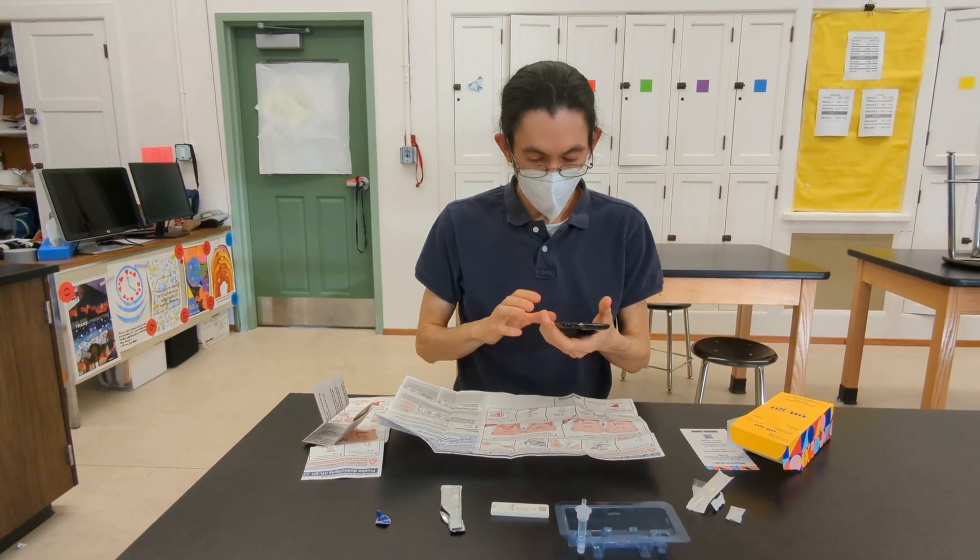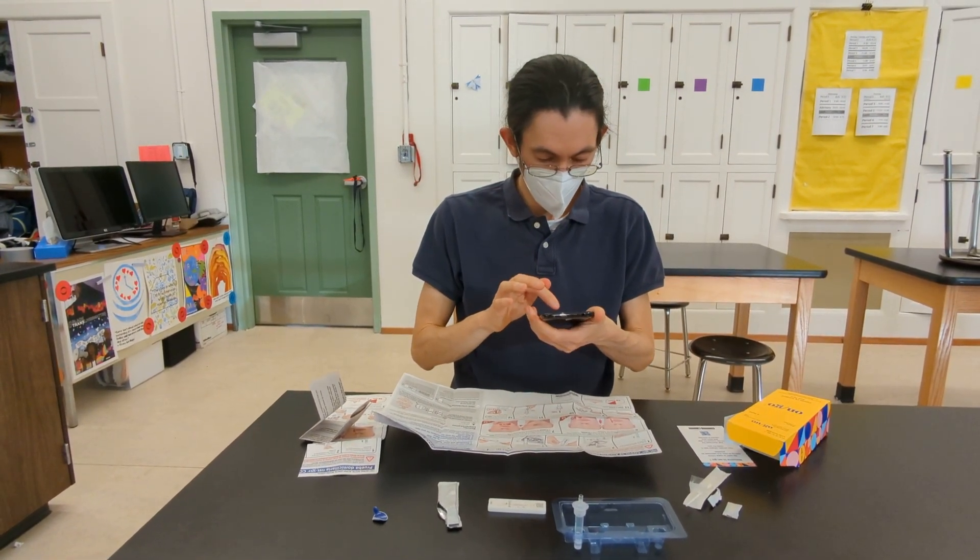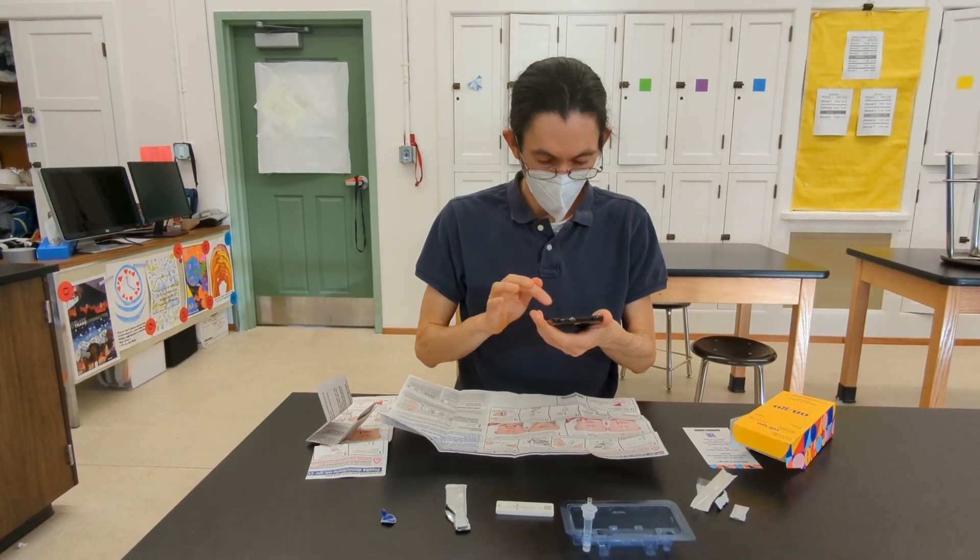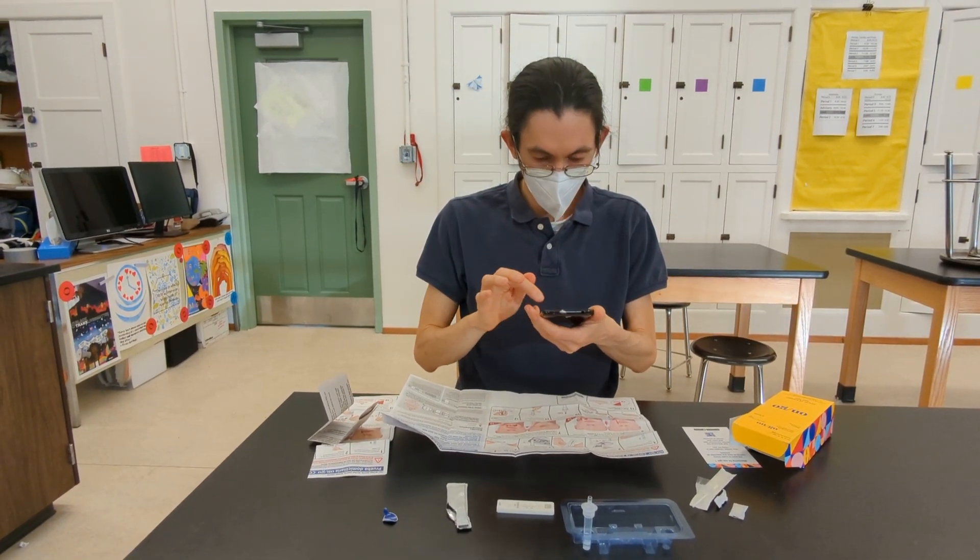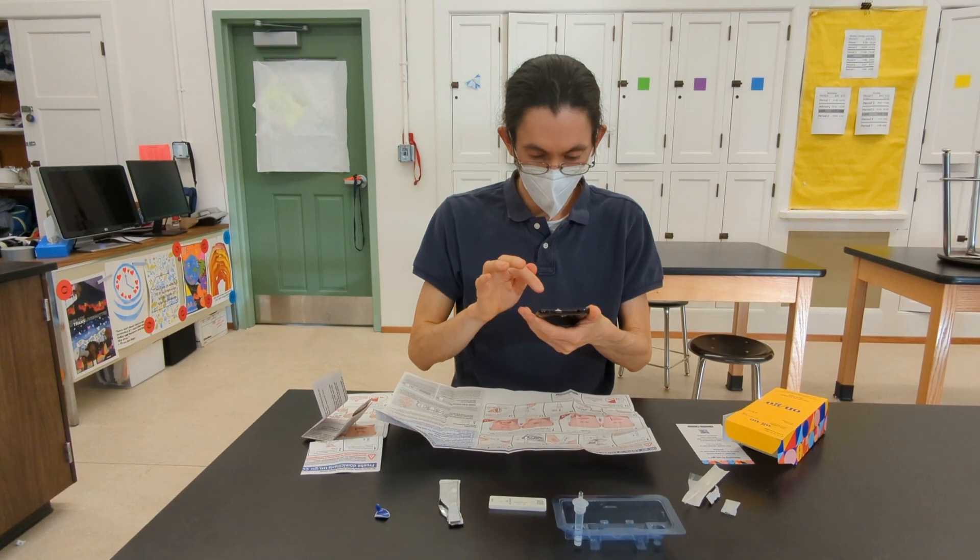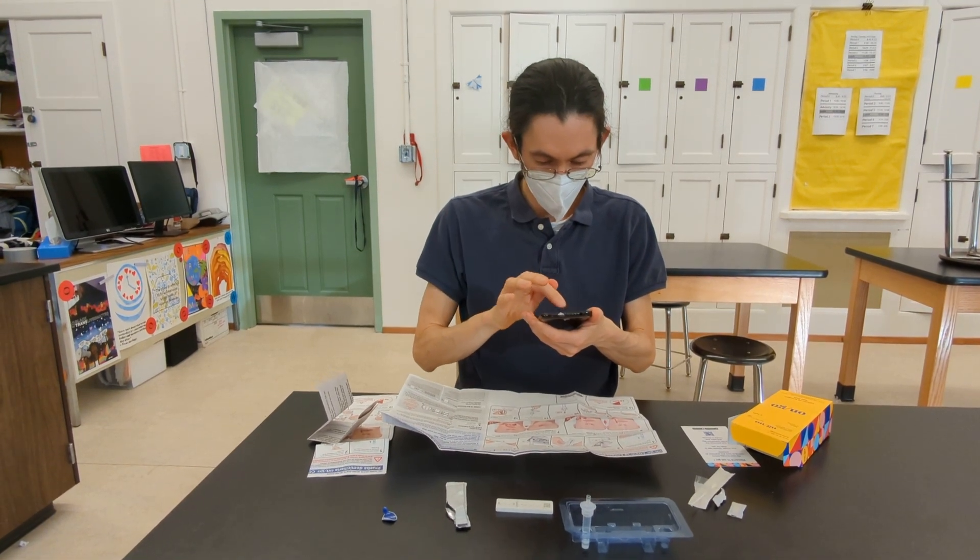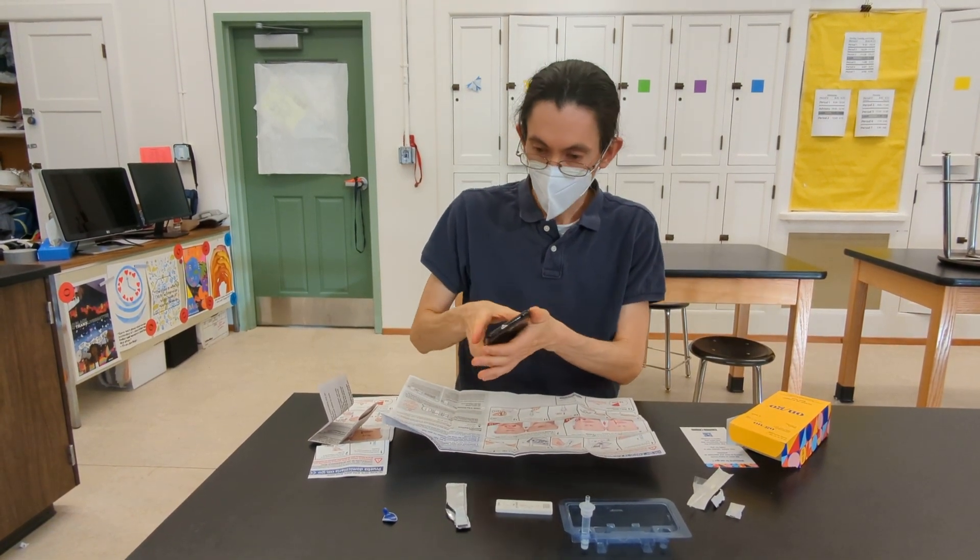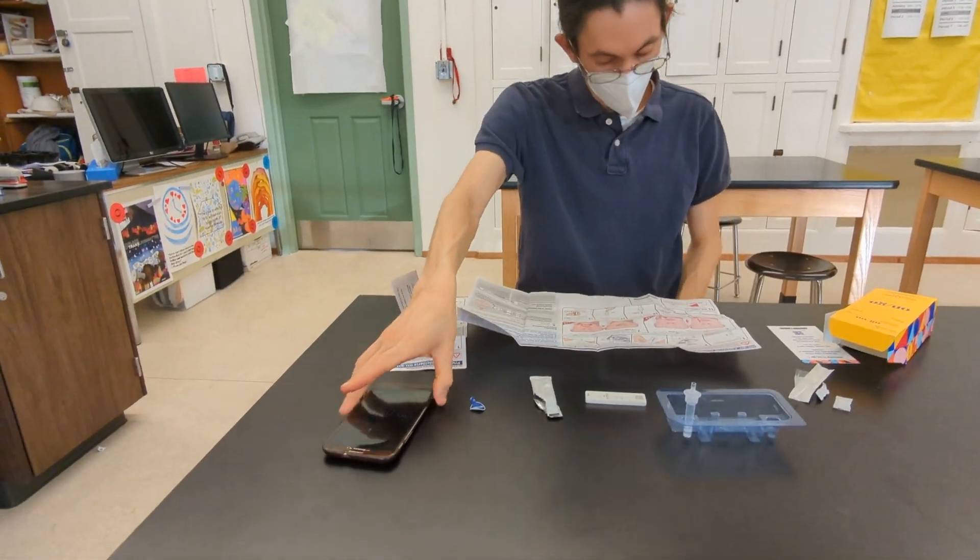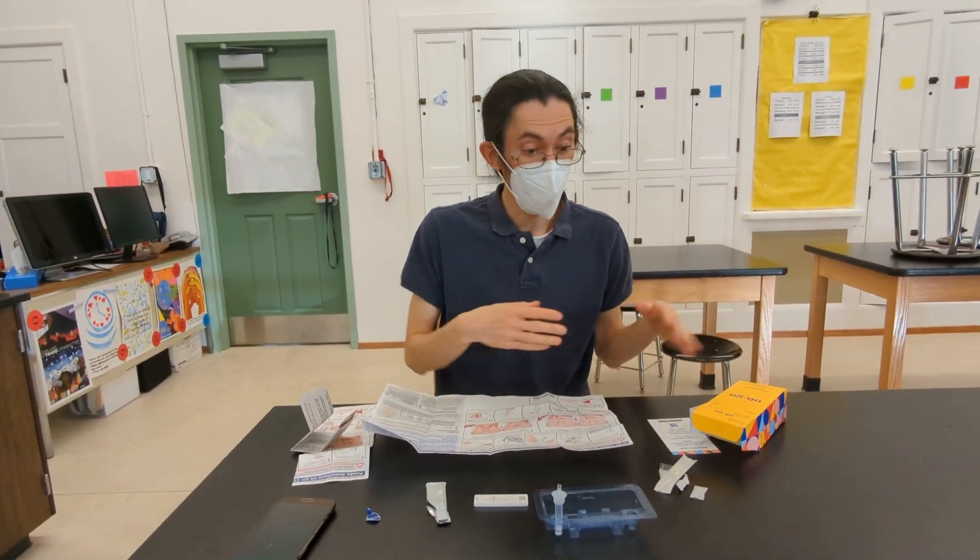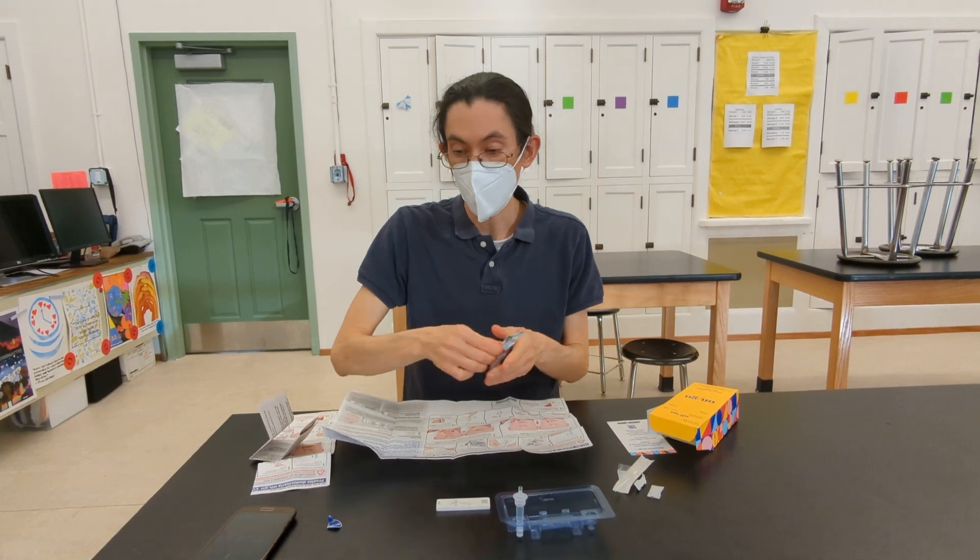Set a timer for 10 minutes. And when your timer goes off, you're going to observe the results of the test. The other materials you can dispose of in the trash.